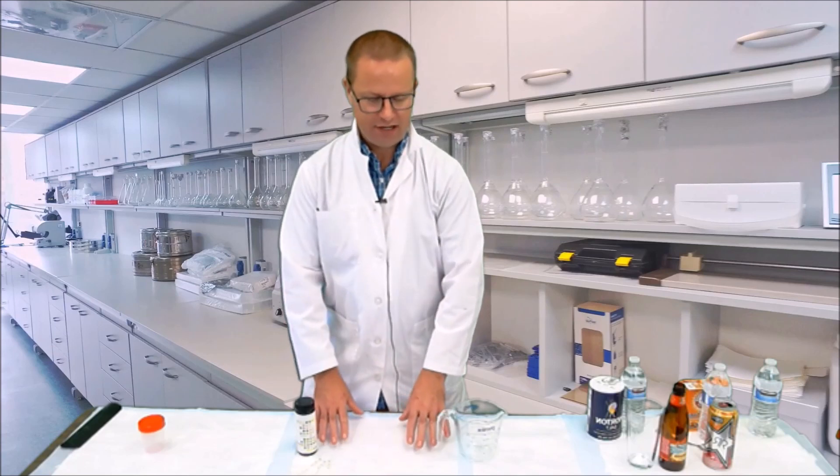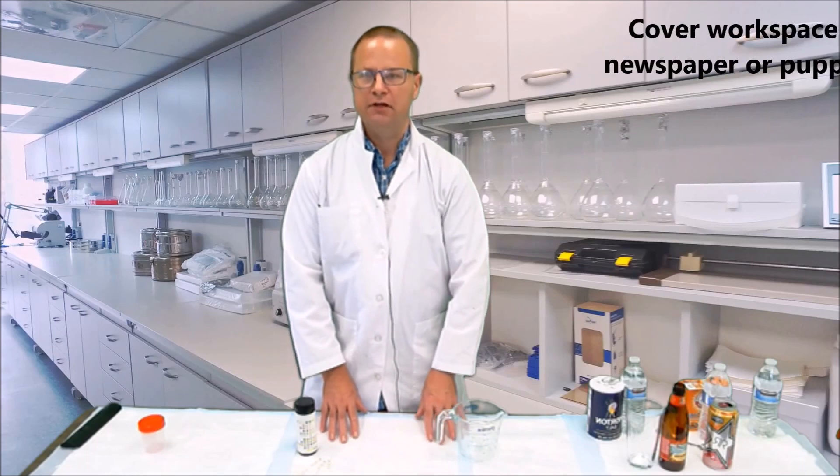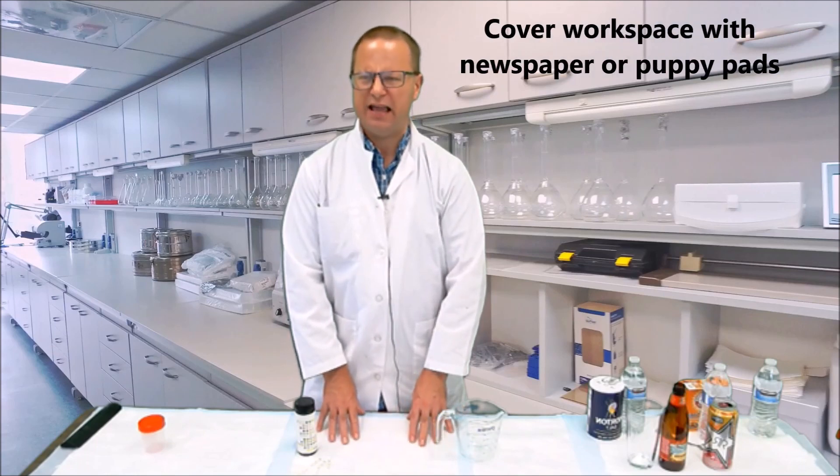Firstly, I suggest you get a working space and coat it with an absorbent material, such as a puppy pad or a newspaper, because pee can get everywhere.